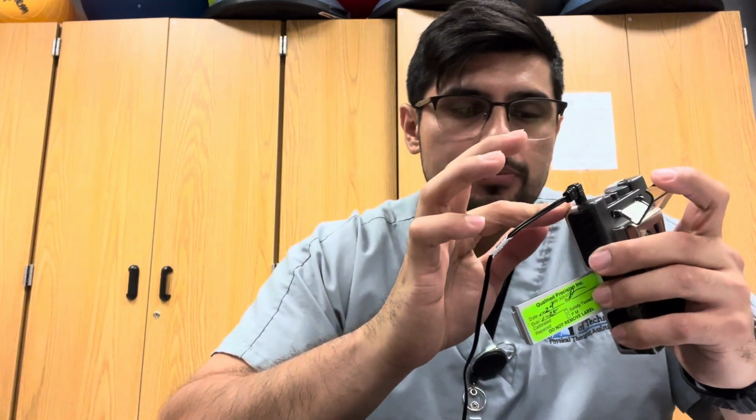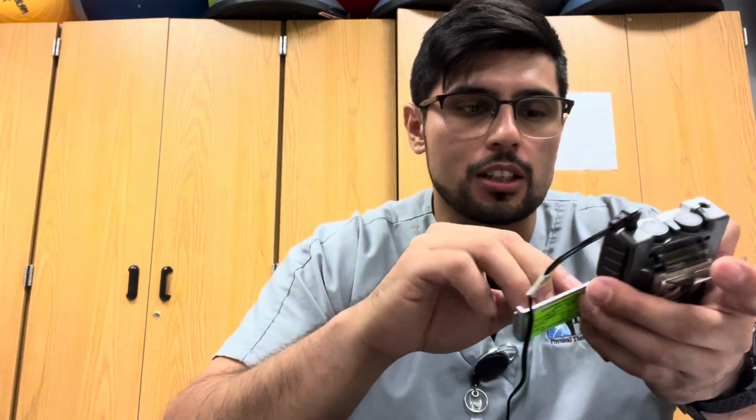But today what we're going to be going over mainly is the conventional setting. So first things first, you're going to go ahead and turn it on. And I already connected this wire onto it, right? Simple. Just take it off, put it back in, and that's going to be one channel that's on, right? So to turn it on, you have the little amplitude knob here, and you go ahead and flip it. You'll hear a little beep sound. Turns on, and then you can see here the settings are right there.